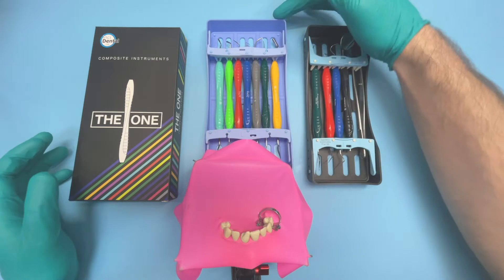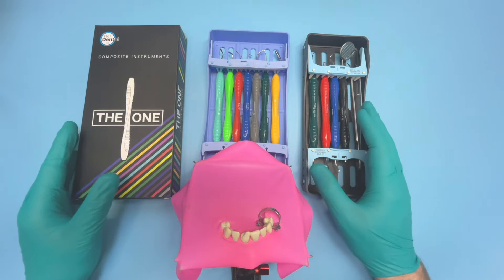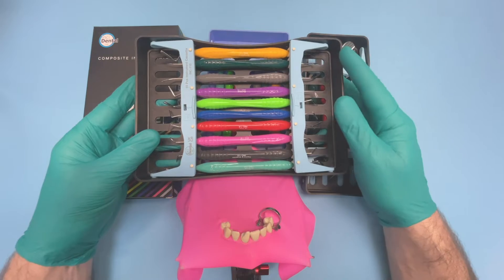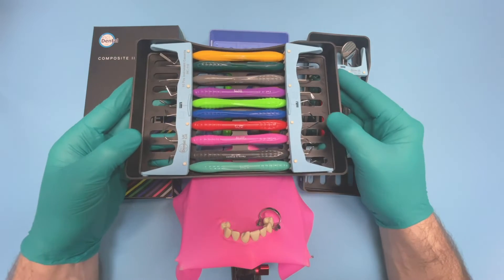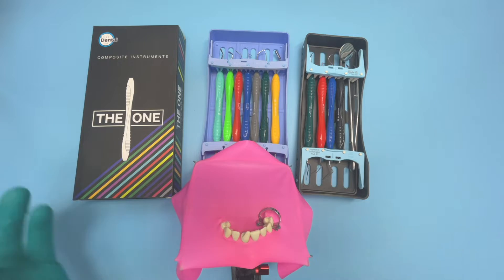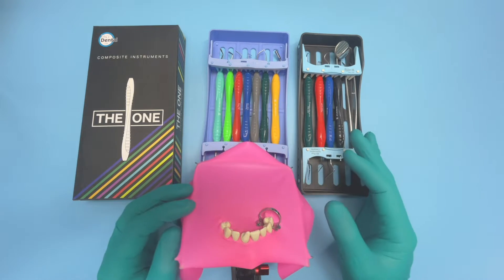Hi, so in this video I want to introduce the anterior collection of the ONE instruments that we retail. I've already done a video on the exam kit and introduced the system a little bit more. We sell the classic kit of instruments which has a mix of both anterior and posterior instruments - it's a good one to get started with. We've grown the instrument collection somewhat, and this reflects how we use them in our own practice - we pick our kit with a bigger selection, and it's better to split it up into anterior and posterior.